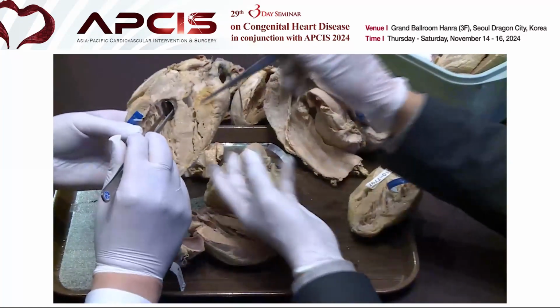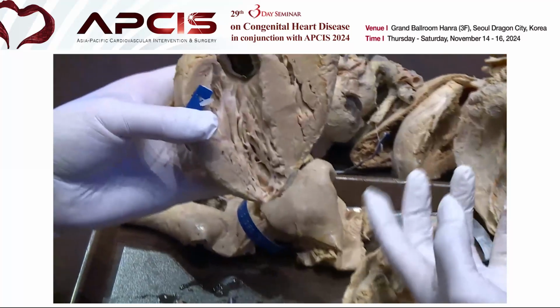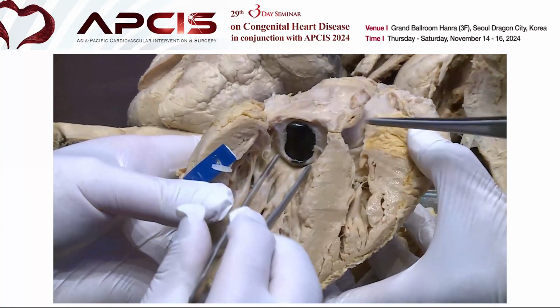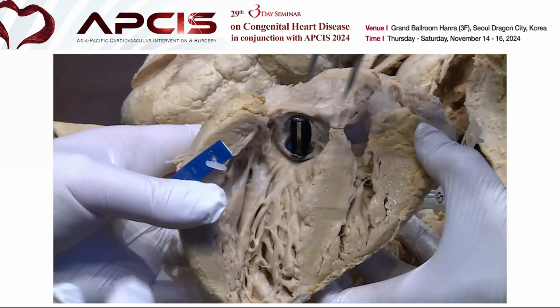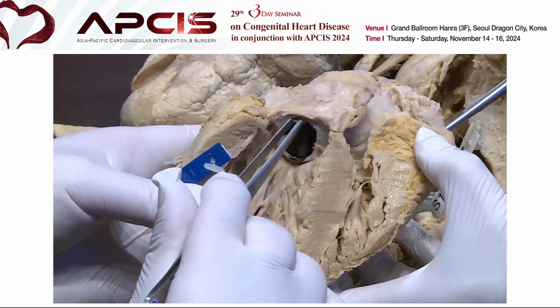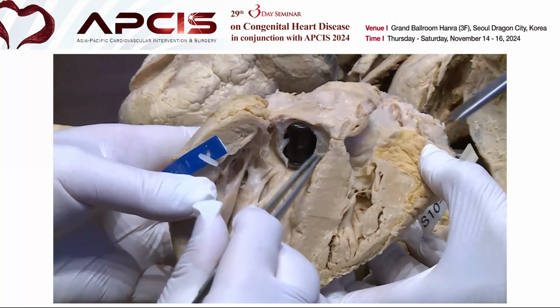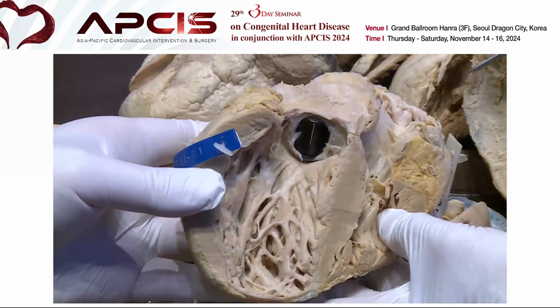You can see this valve is a central valve. The strut is on the ventricular side, so the valve is slightly intra-annular, but some leaflet is on the ventricular side. There is also some subaortic pannus, but it is mild.